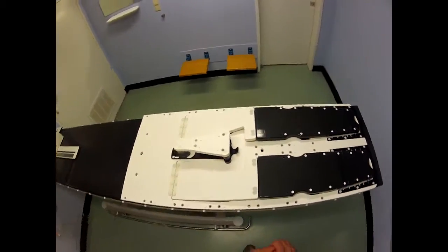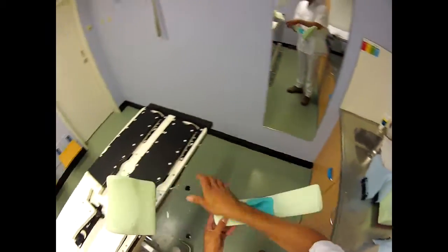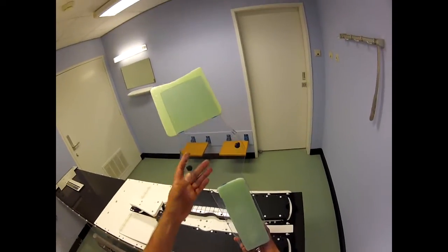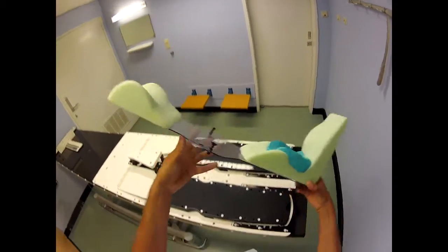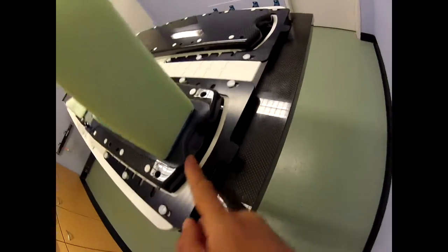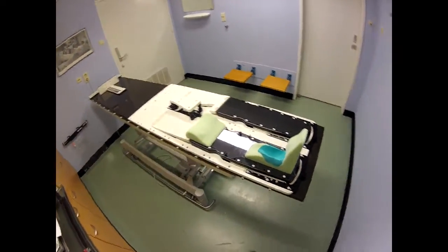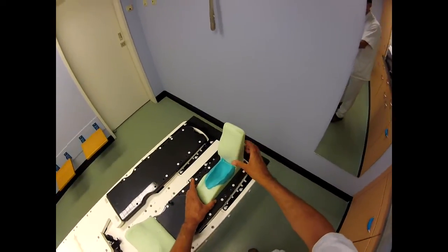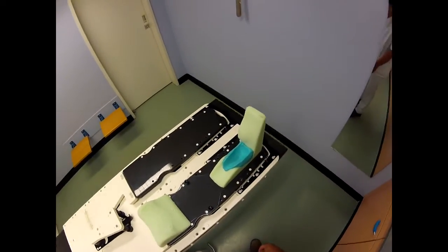I just wanted to see if it was possible to do the things we do. I already made it, and no surprise — it works. Maybe you remember from the last video: we use some acrylic base, and it fits over here and over here. We also use polystyrene — a polystyrene knee support and a support for the foot. This is all usual stuff for us, so that works.